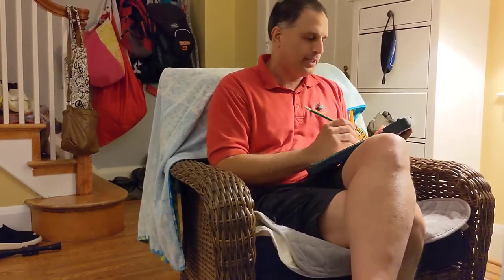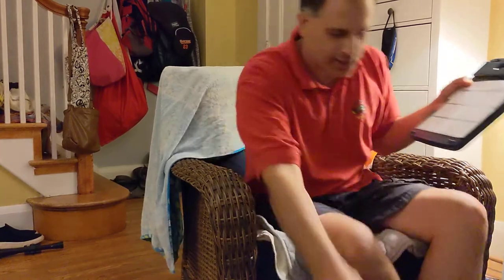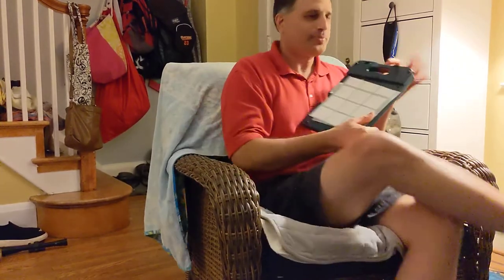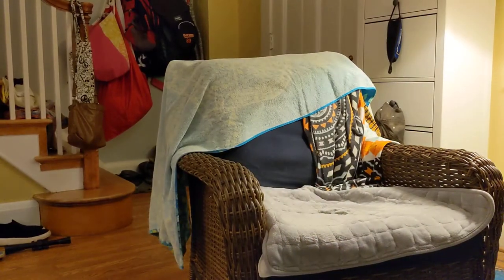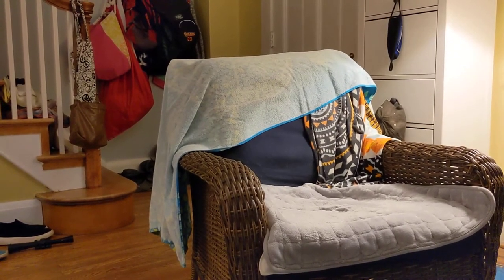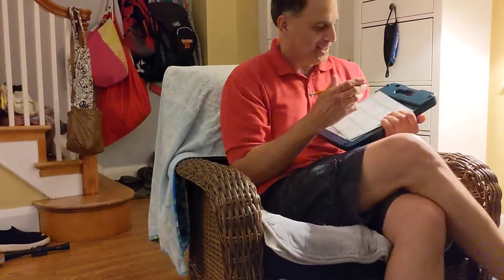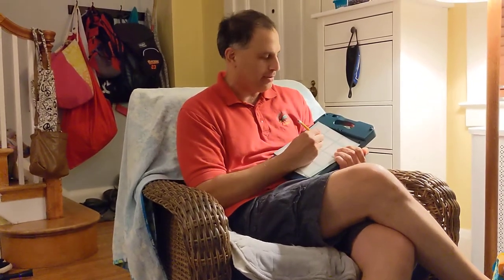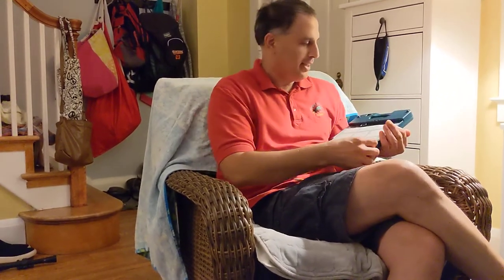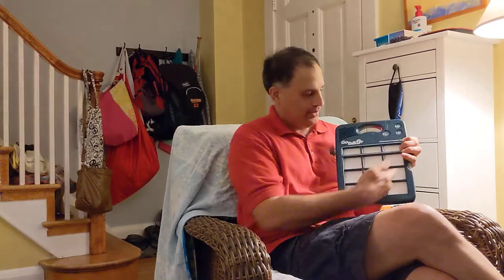So I could write some new messages. This pen doesn't work — let me grab a pen. I'm back and I have a pencil that works. So I could write something on these like "piano," or if I'm an artist I could draw a picture of a piano, and I could write "mushroom" — you know, whatever you want. "Up," "down" — you could write some words on here. And now I'm all set and I can put my new overlay with my new words or pictures in here.